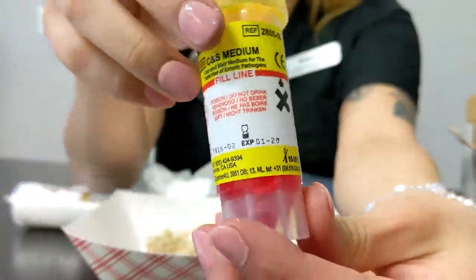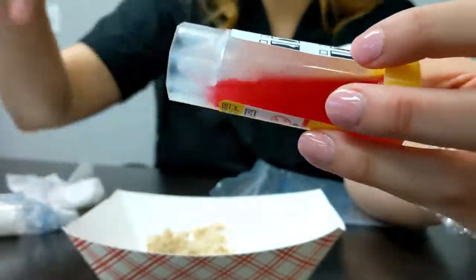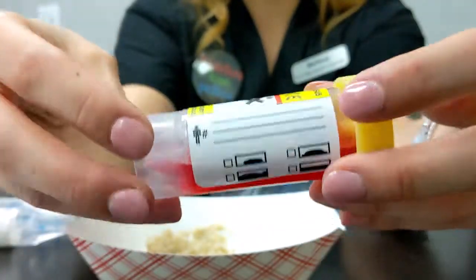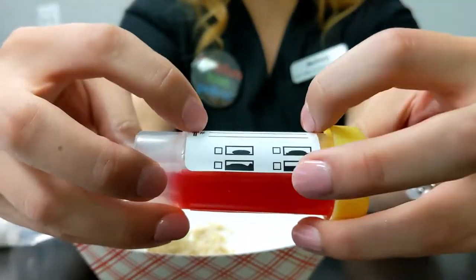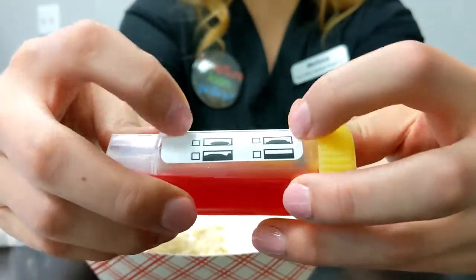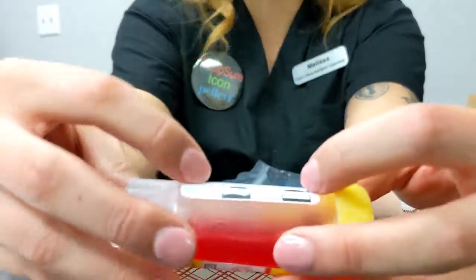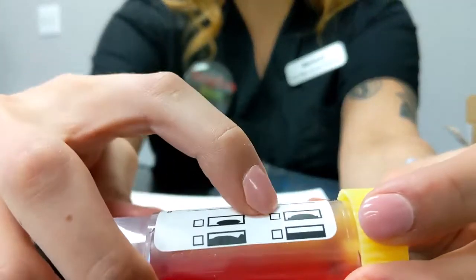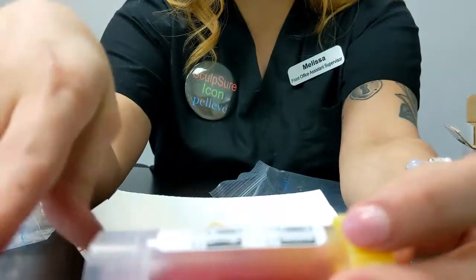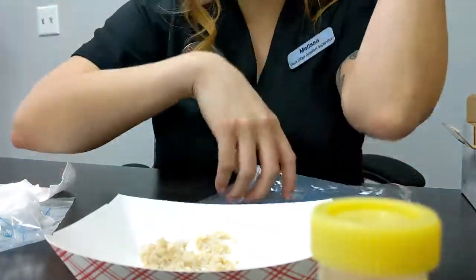This particular vial has information here. Actually, all vials have this information here, so it should always be filled out right before you put the stool specimen in there, your name information, so that they can process it. And then you want to indicate on here what your stool specimen is, the consistency of it. So there's a fully solid, semi-solid, really runny, or complete diarrhea liquid stool. So indicate what it is when you see it. And then you can start to collect.